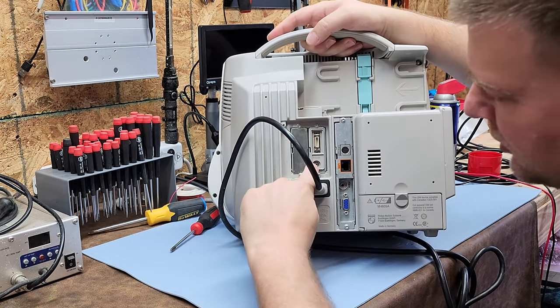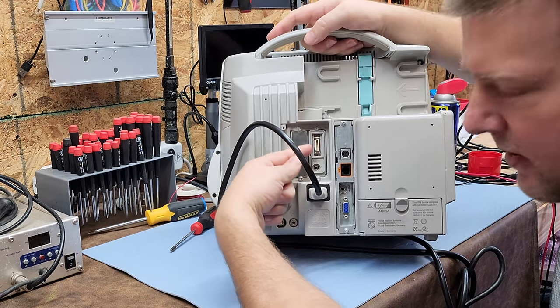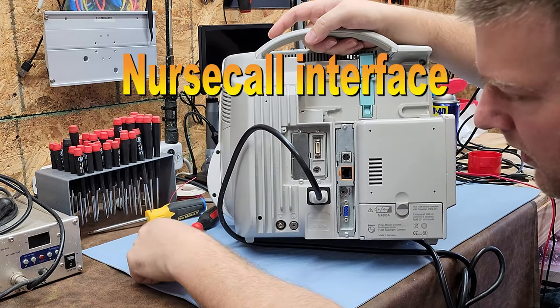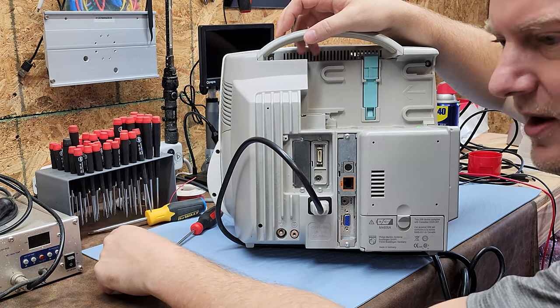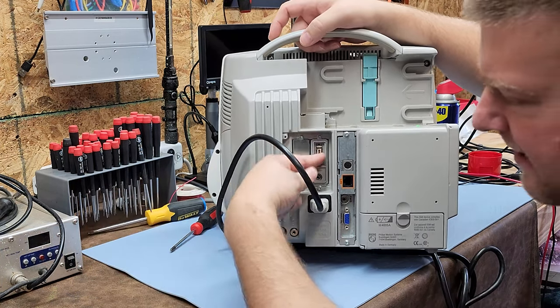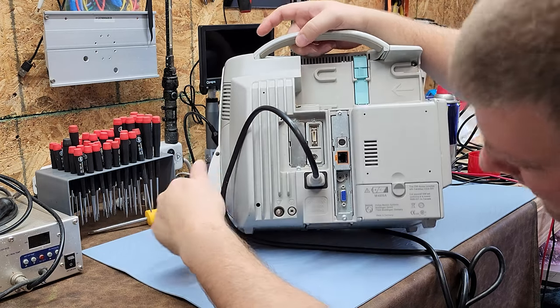On the back we also have the Philips network variety of ports. There is an alarm output so you can connect external alarms, and a video out — useful if the monitor faces one direction and you want to display it outside the patient's room so a nurse can see what's going on. There's another alarm out here, and a serial port for interfacing with your digital medical record system.